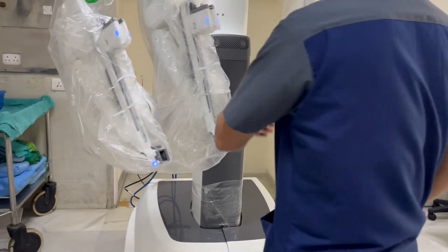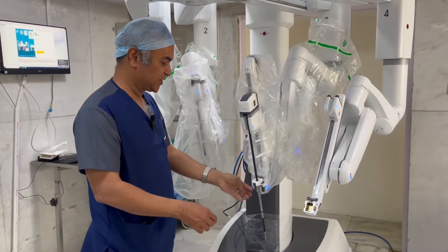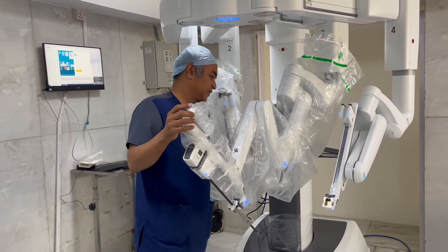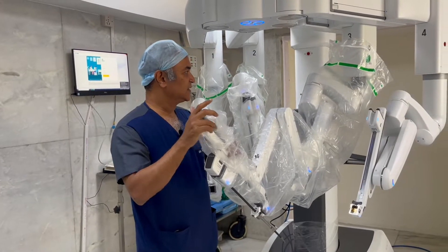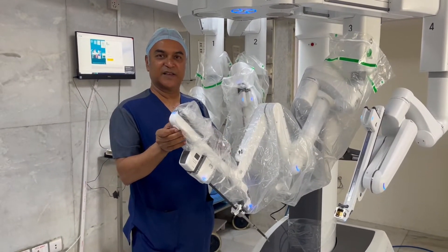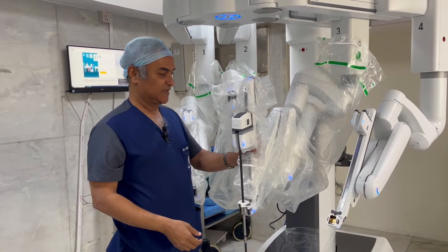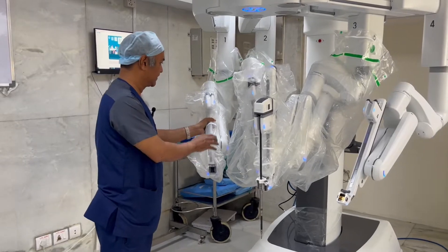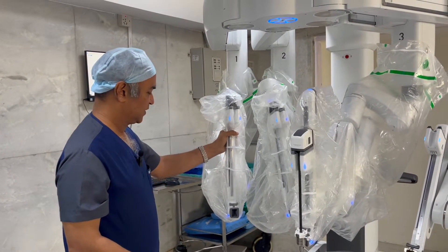We have the advantage of moving this in various angles. I have one click here and I can move this in this direction; I press here and I can move it in another direction. I have further controls here to move it in even more directions. All movements combined, we get 9 degrees of freedom — that is a tremendous advantage when we are doing complex dissections. Once I have this grip here, I can actually move the robot around with my grip.